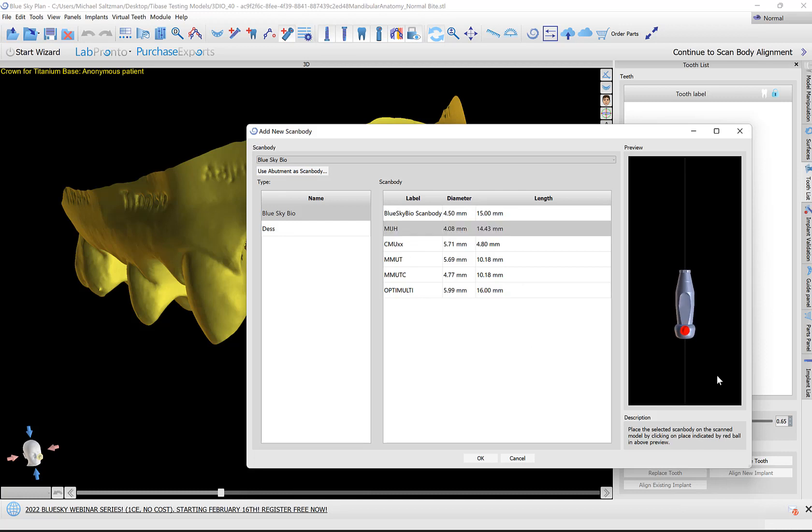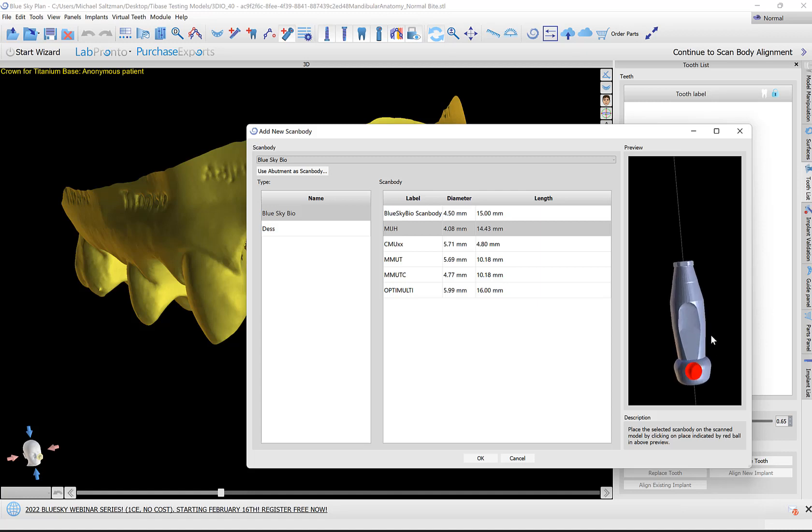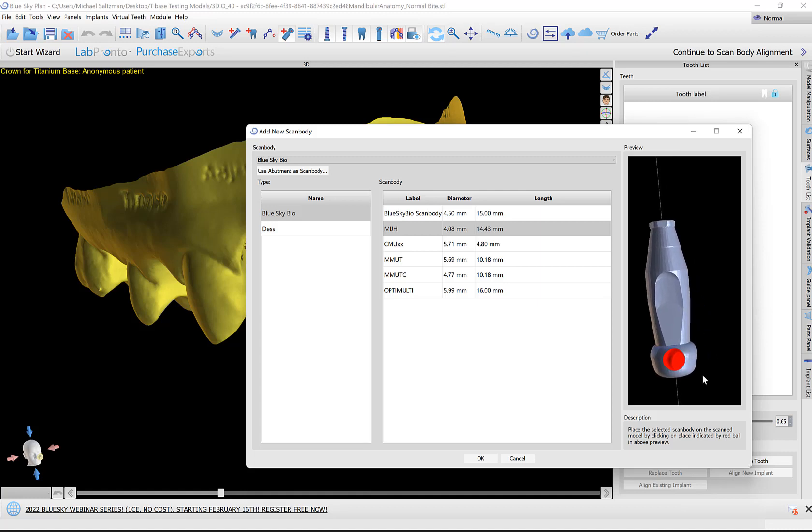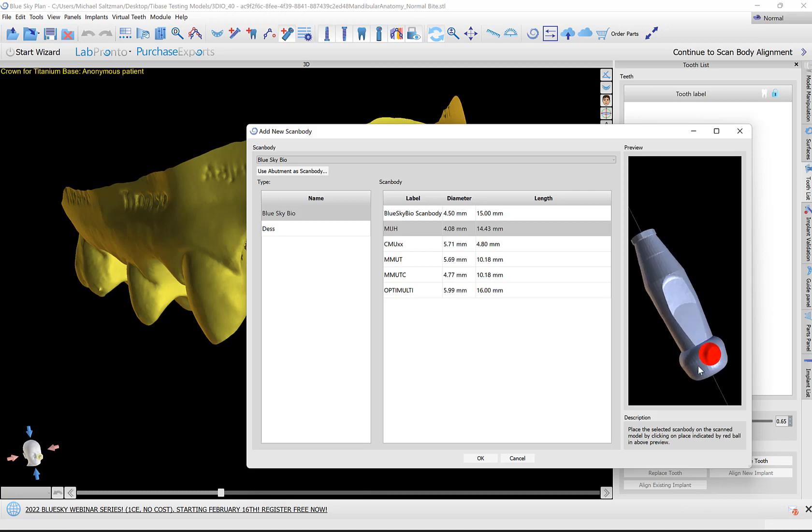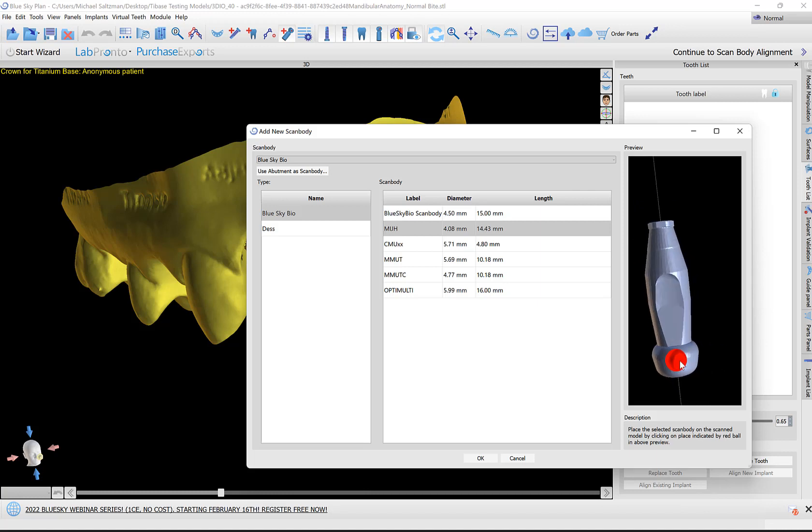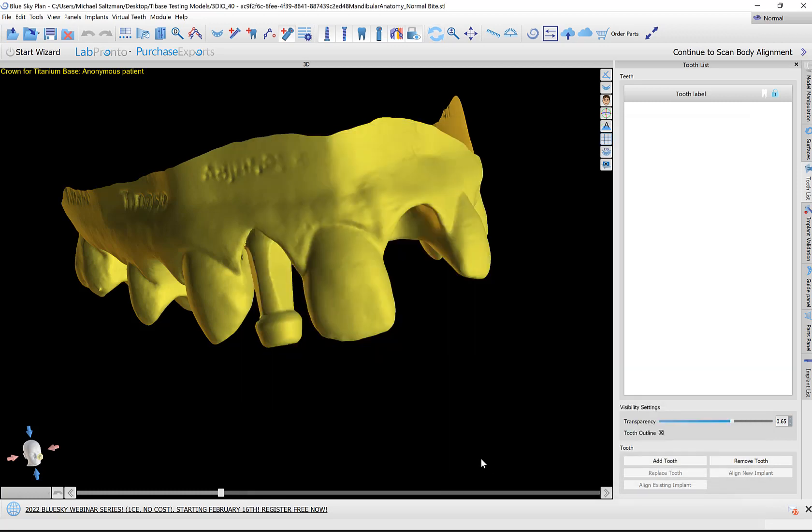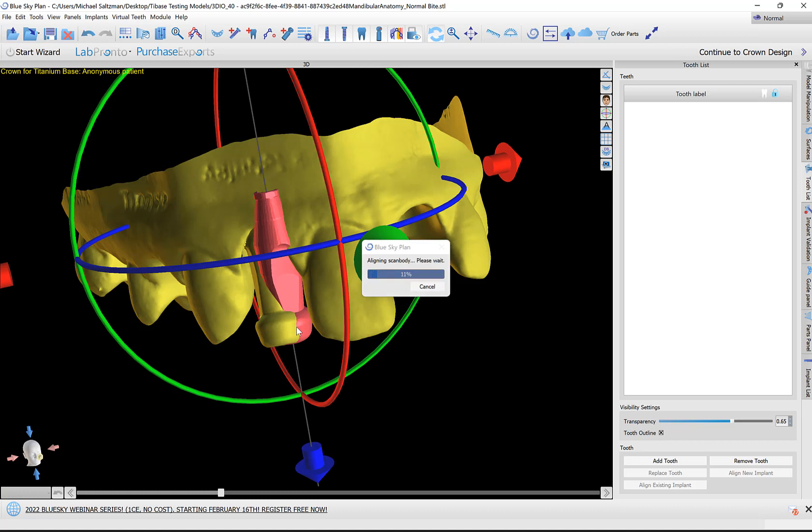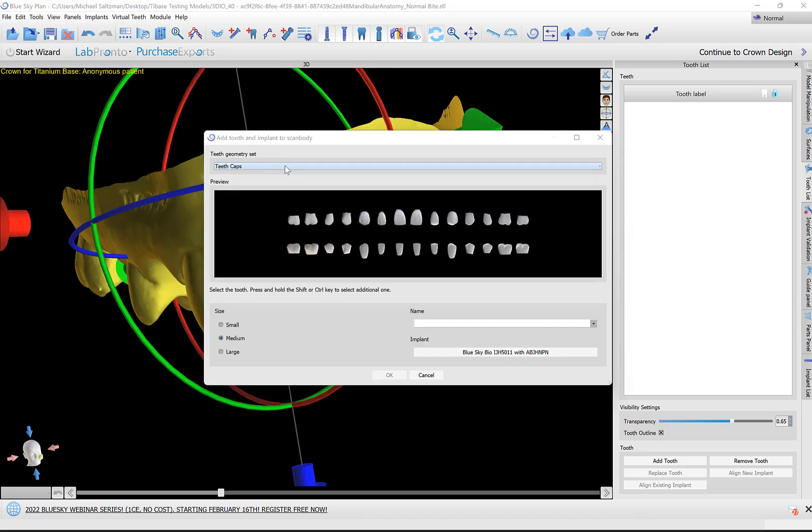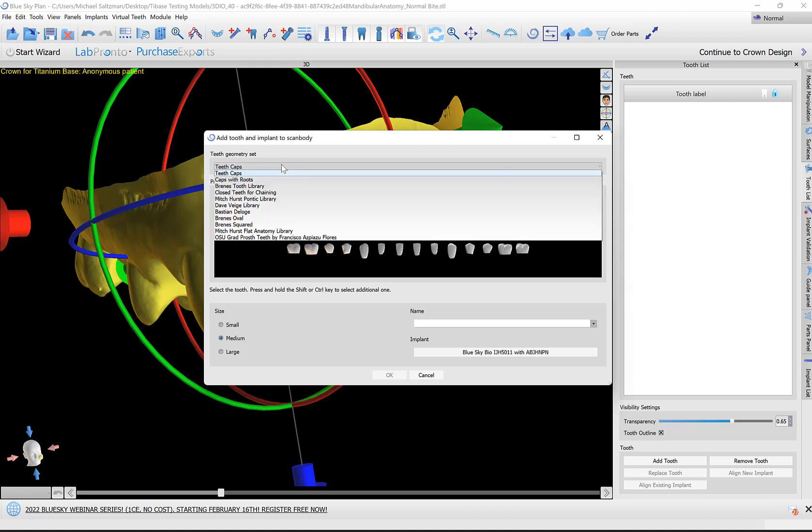We're going to proceed by selecting the relevant scan body that's being used. We can zoom in and out and rotate with our usual mouse functionality. But what's important here to notice is that you want to click in the same spot as where this red dot is located. Generally, the red dot is positioned on a flat of the scan body or right above a flat of the scan body. I'm going to click on OK and then select that same position where the red dot was.